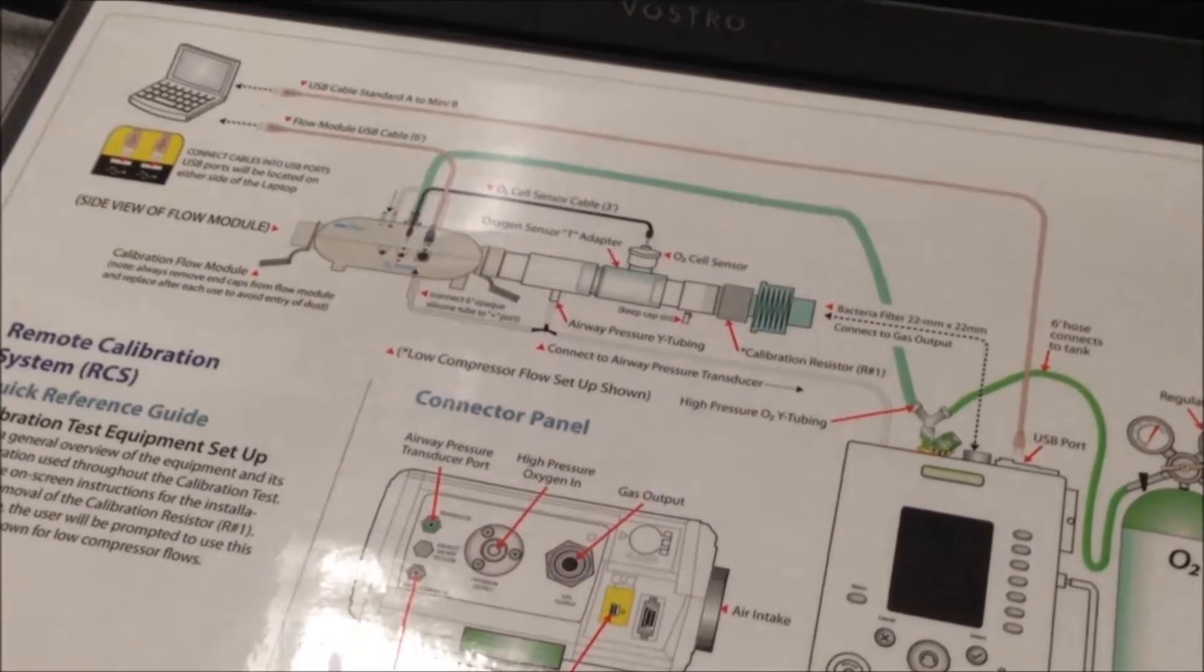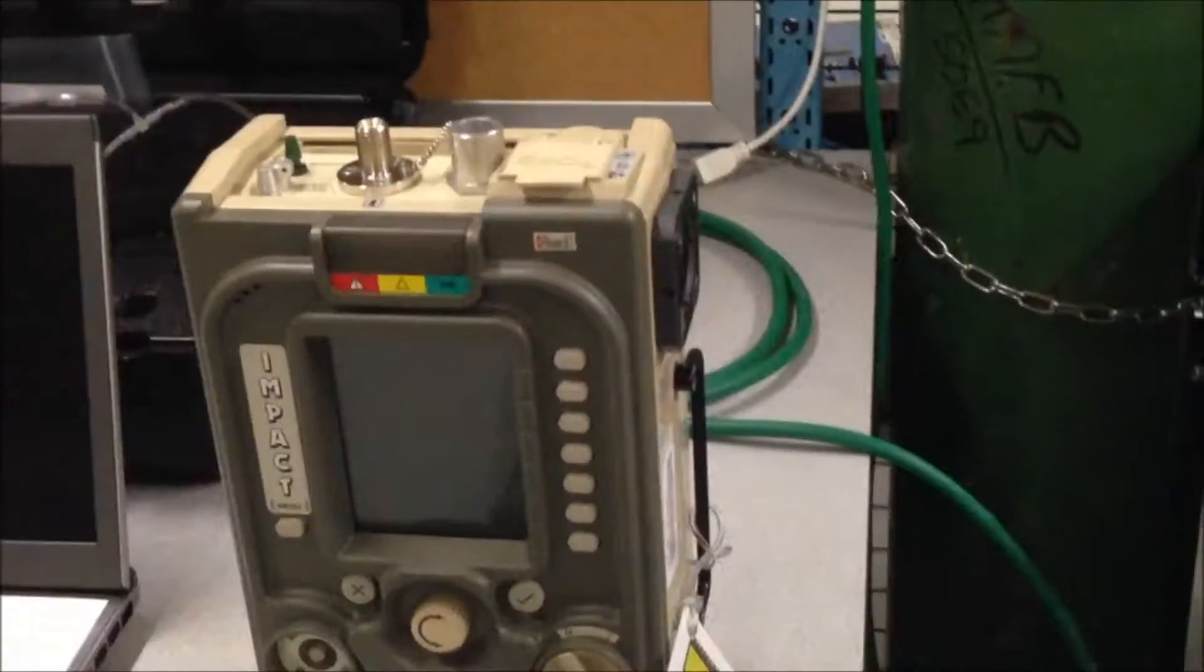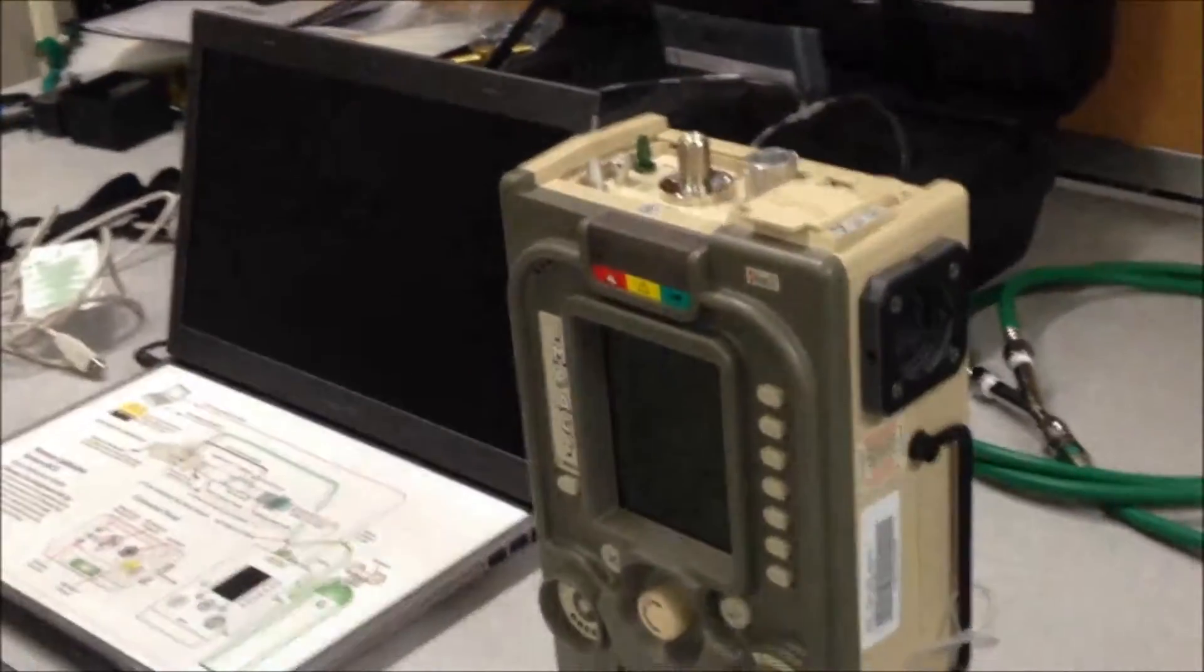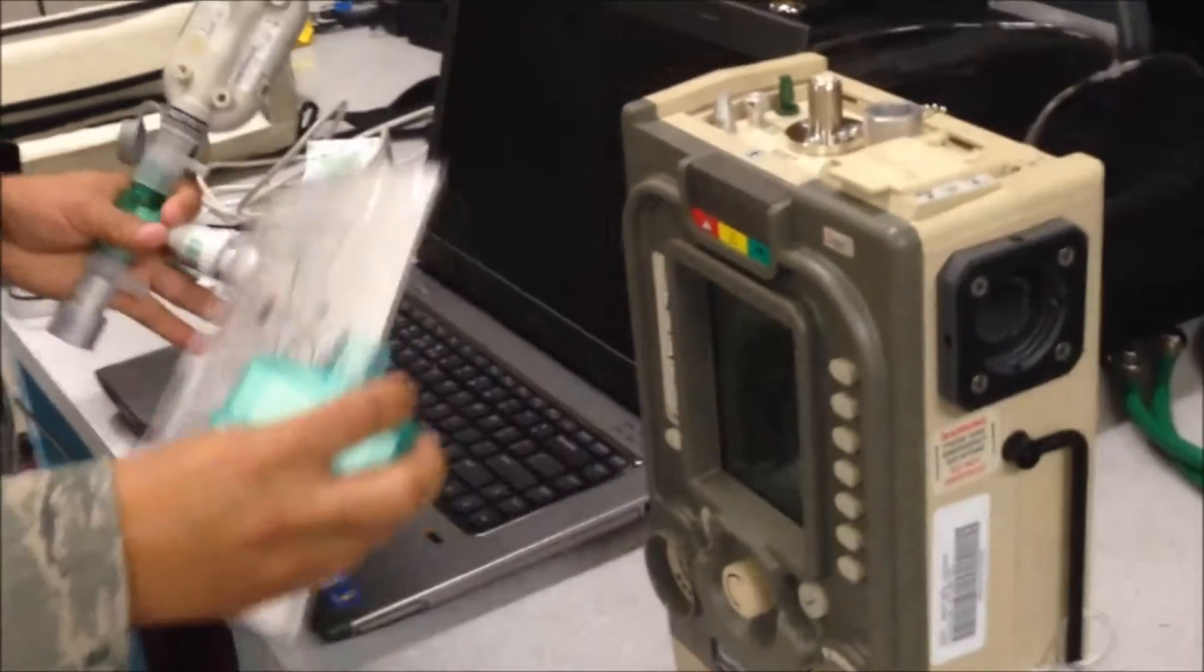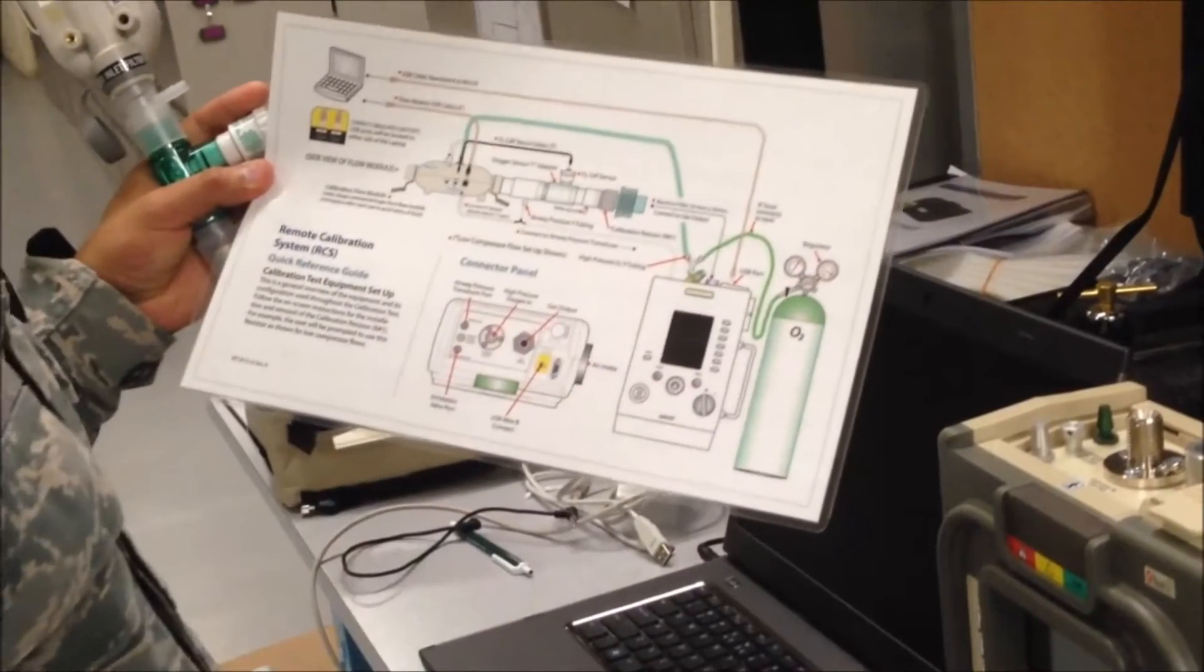Connect the remote calibration system according to the quick reference guide. First, following the instructions on the quick reference guide, you're going to want to connect your filter to the unit.